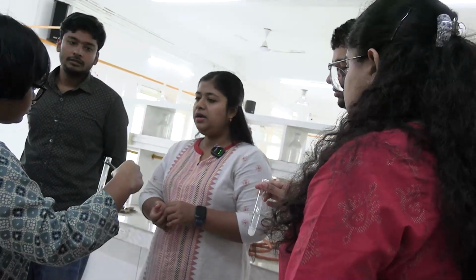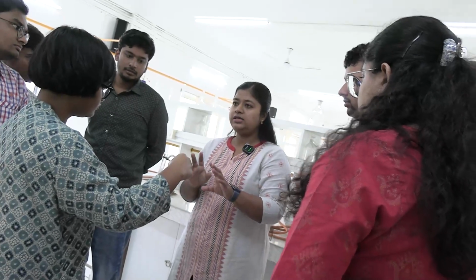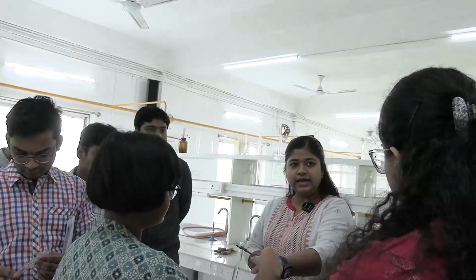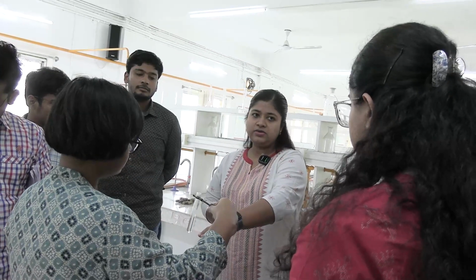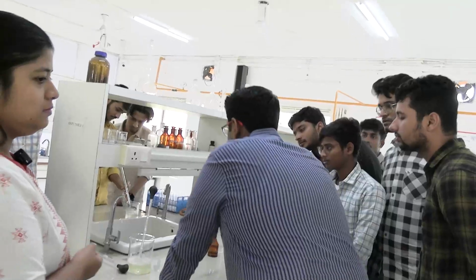And why are two separate parts kept? Why is only the upper part heated, not the lower part, or the full test tube? Why? To compare. Okay, the lower part we take as control part to compare whether the cloudiness is proper cloudiness and the lower part is transparent or not. If the whole sample is cloudy, then we can't define.